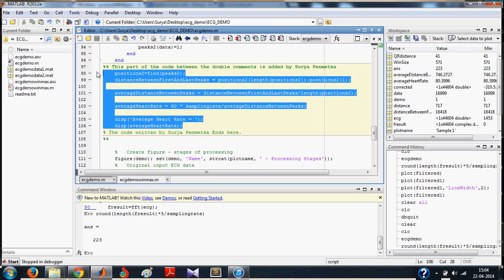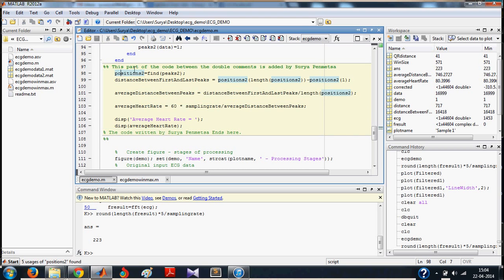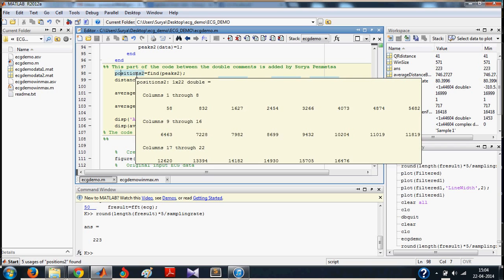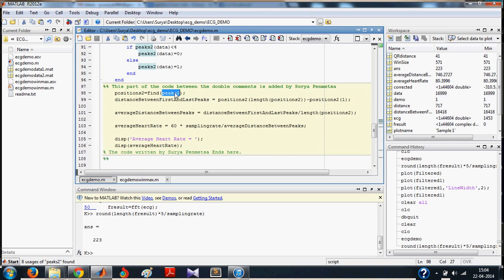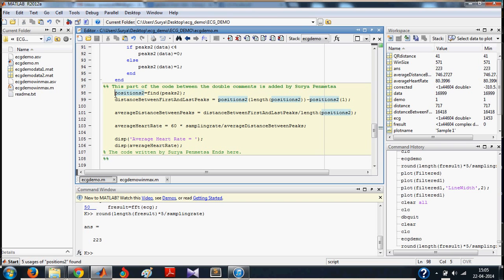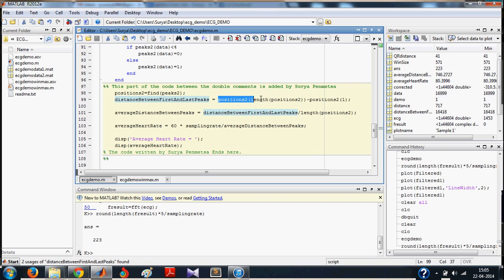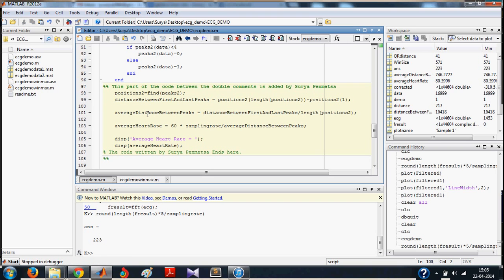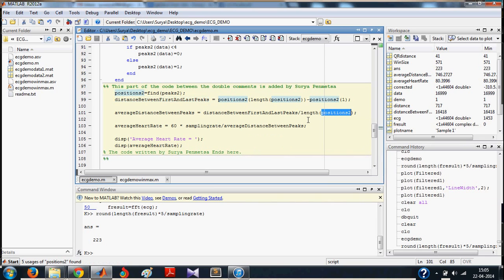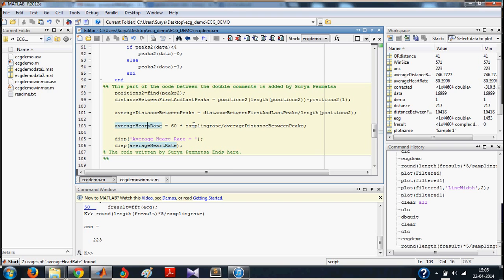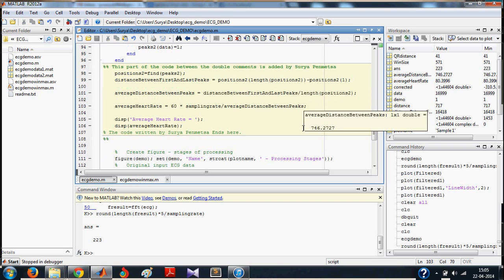And this is my contribution to the code. So what you do is you find the positions of all the peaks here. And the distance between first and last peak would be calculated by this step. And the average distance between the peaks would be distance between first and last peak divided by total number of peaks. The average heart rate of human as described before is calculated by this formula and it is displayed on the screen.